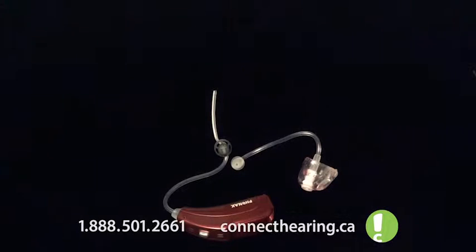Maintenance on an open fit behind the ear hearing aid is something that can be done at home as well. You are given those instructions during your fitting process, but there's a lot of information to take in at one time, so we're going to show you how to take care of things at home as well.